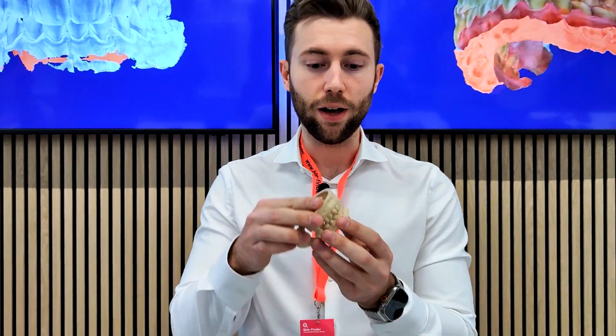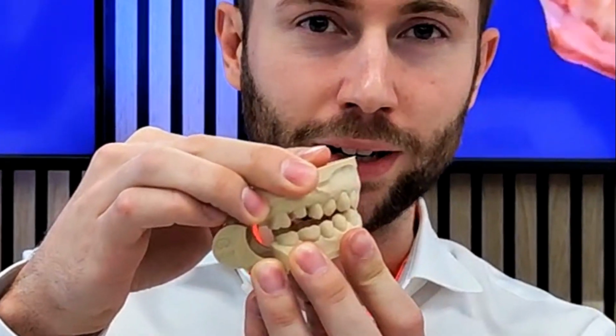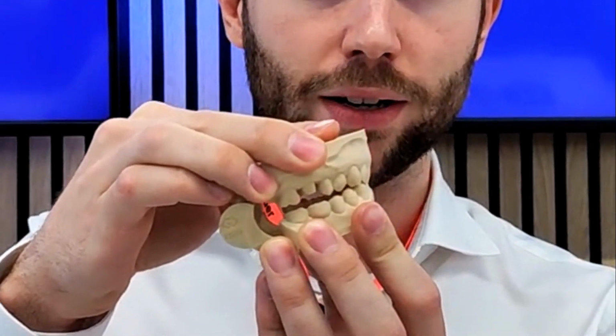We developed Bitefinder to solve a very important issue in digital dentistry, the issue of penetration or disclusion. Whenever you receive an intraoral scan which has penetration, teeth cannot be inside each other, it's not possible. And that's the reason why your crowns are too high or too low. If you have some air between, your crown will be too high.